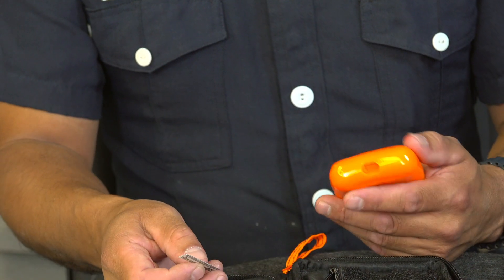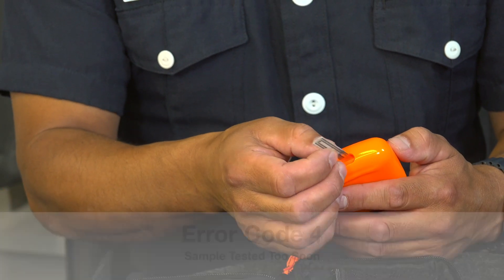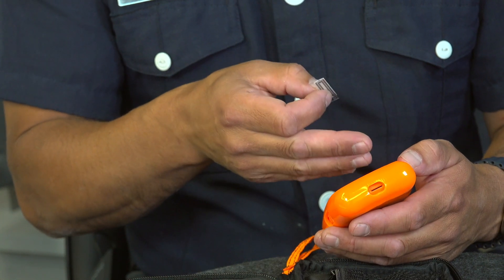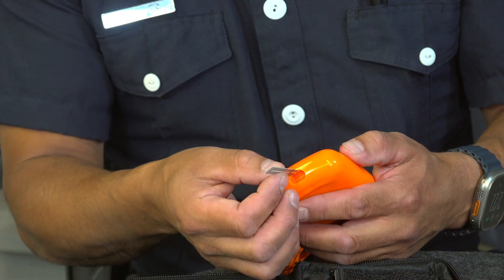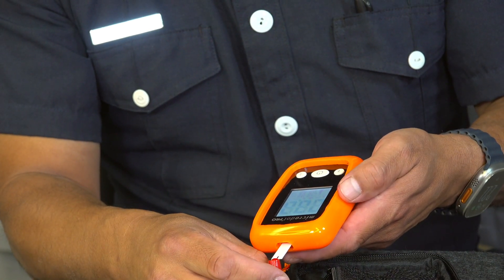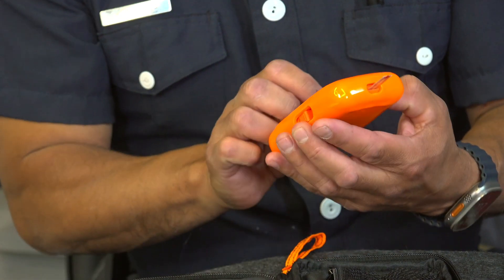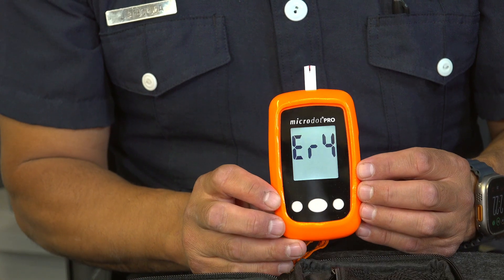Error code 4 is what you're commonly getting in the field. This happens when you plug in your test strip but don't wait for the blood-draw diagram to pop up, and you collect your sample too quickly. I'm going to demonstrate that right now — you click the strip in, you've got your blood sample ready, and you start collecting before you see that diagram, and immediately you'll get error code 4.